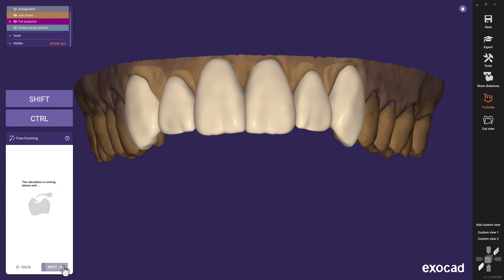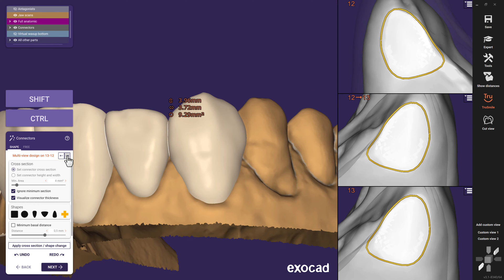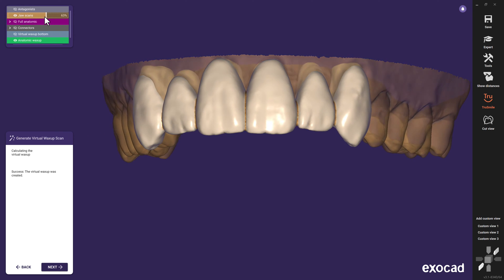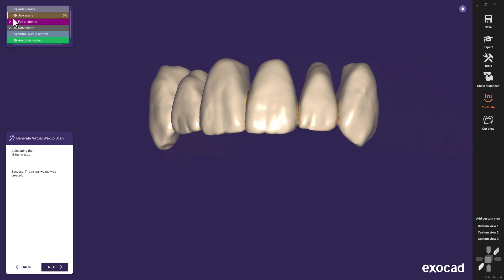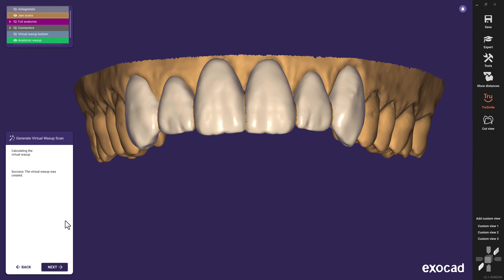The next step gives us the possibility to connect all six objects. I select Join Tooth Shapes directly as connector geometry and click on Apply. By clicking on Multi View Design, we get a detailed split view from every connection. Clicking on Next starts the calculation of our virtual wax-up. In addition, all teeth are also saved individually without connectors as digital tooth models. To create a clip-on mockup, one more action will be necessary — we proceed with the next step to do the so-called hard cut.